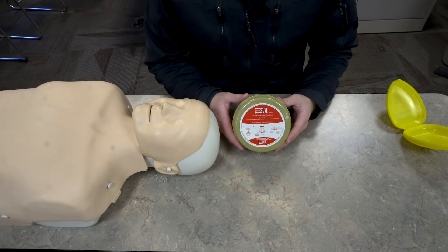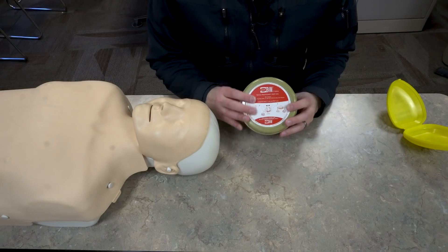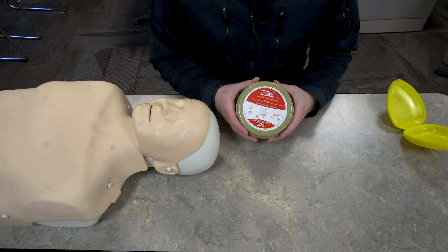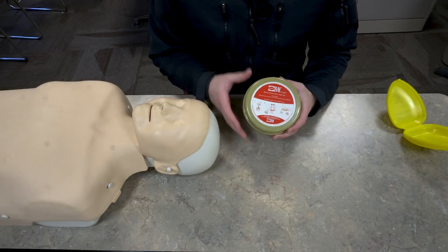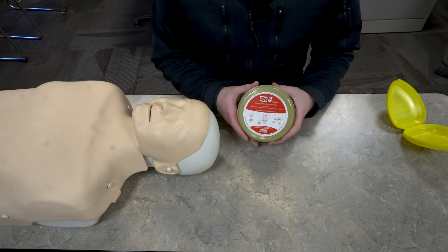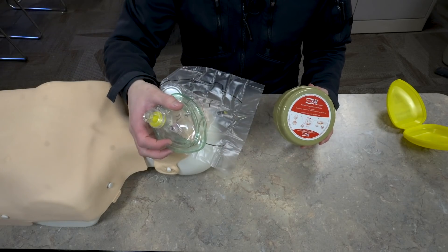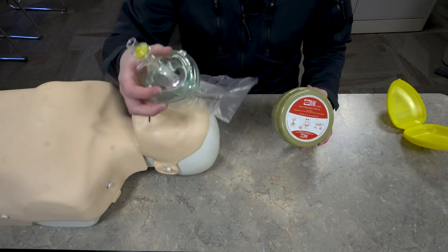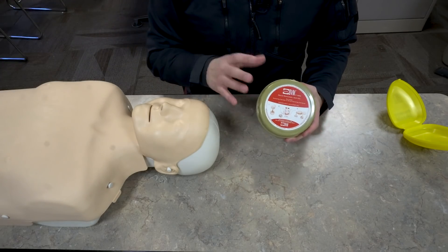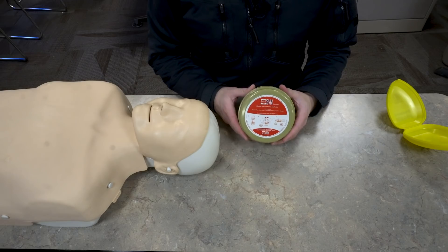In the professional setting we're going to be using bag valve masks. These offer the lowest risk of infection from the patient and they also give us the ability to deliver a high concentration of oxygen to those patients. With both the face shield and the pocket mask we're only giving them about 16% oxygen because that's about all we expire, but with a BVM we can give them up to 100% if we have an O2 tank present.